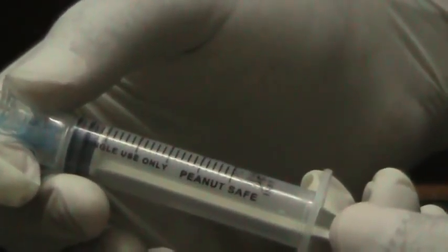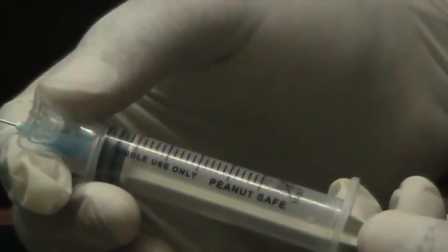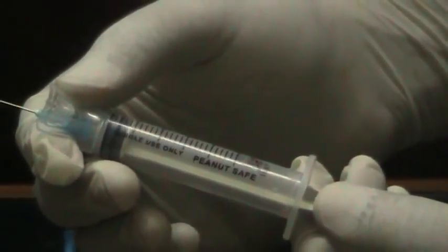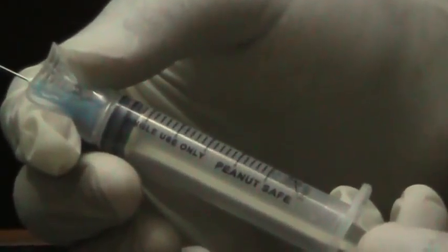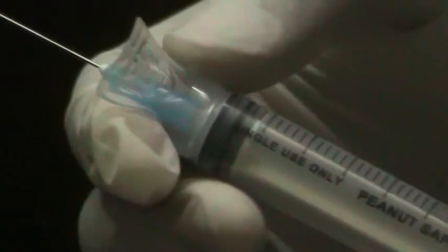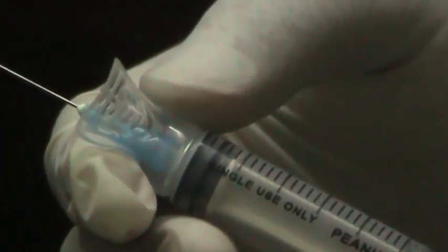But in peanut safe, it can be done for multiple procedures like blood aspiration and injection in a single patient, in a single sitting, producing less plastic waste and more judicious use of resources.